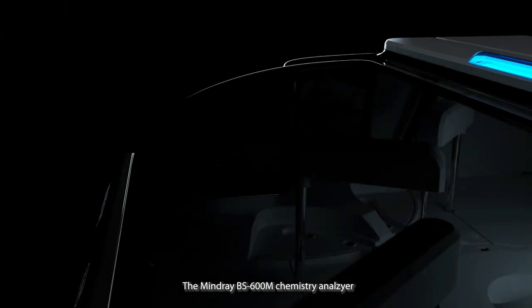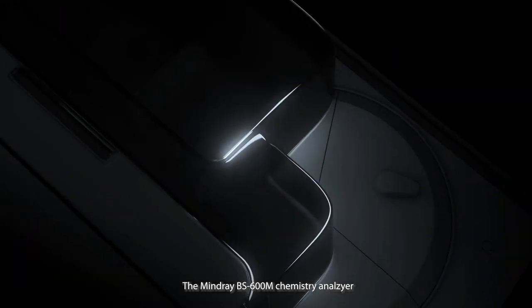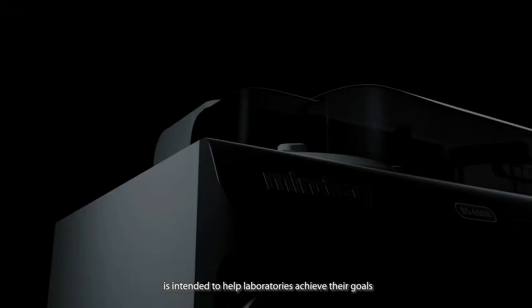The Mindray BS 600M chemistry analyzer is intended to help laboratories achieve their goals.